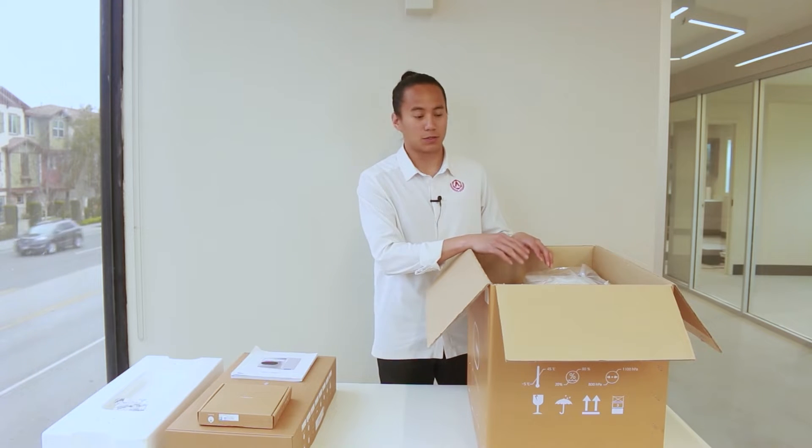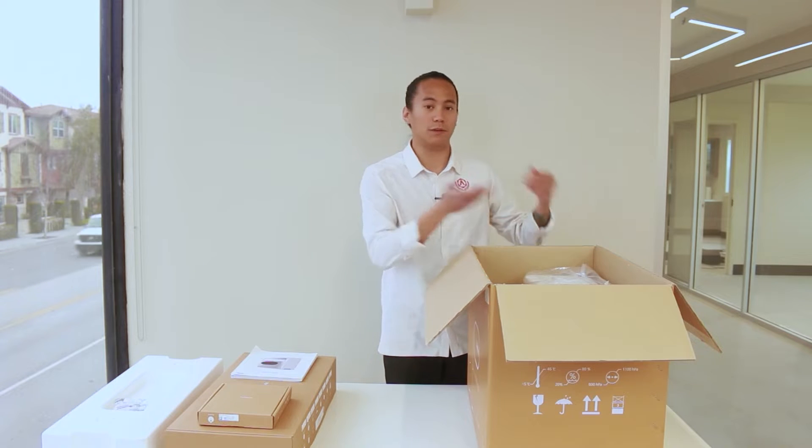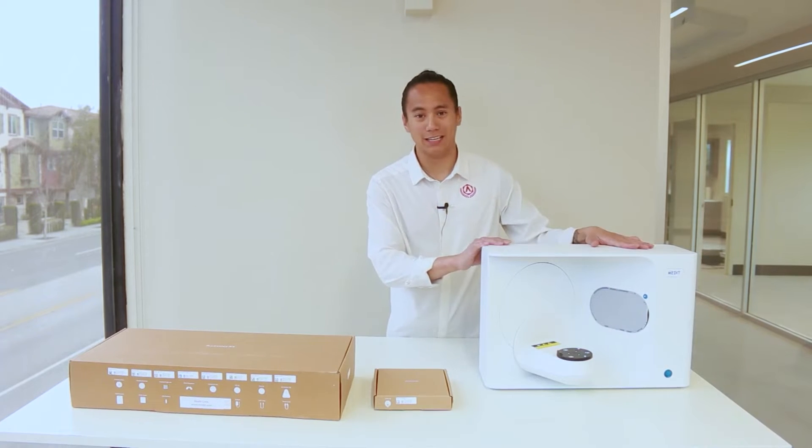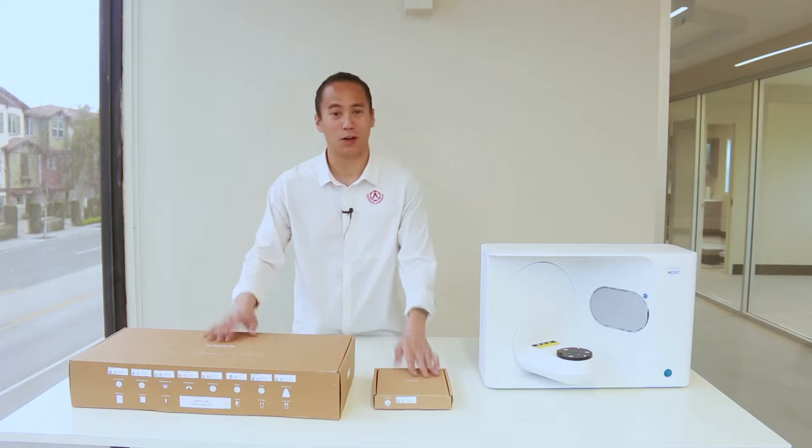Now, the scanner is quite heavy, so we always recommend you have someone help you remove it from the box. Once your scanner is out of the box, we'll go ahead and go through all the accessories.